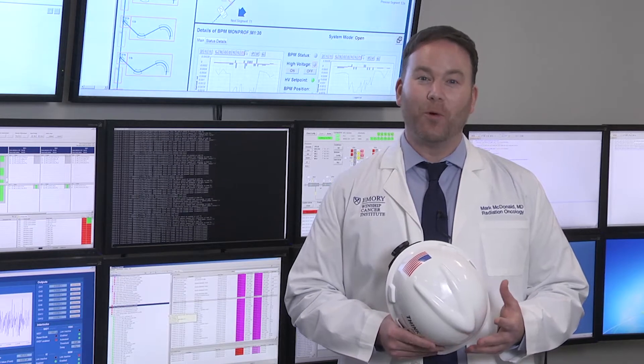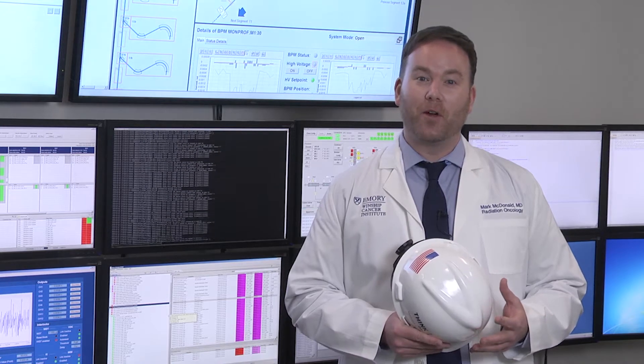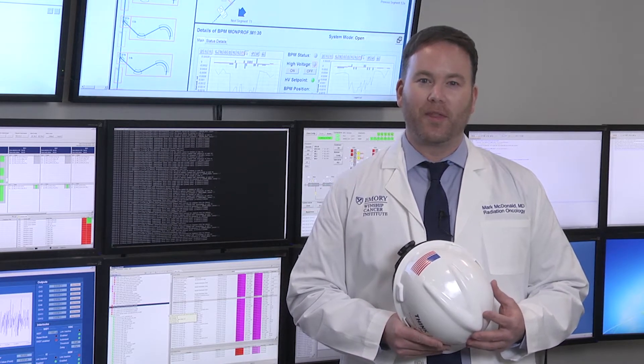We're standing in the control room of the Proton Therapy Center. But let's go behind the scenes and step into the vault to see some of the equipment that we use to produce and deliver proton therapy.